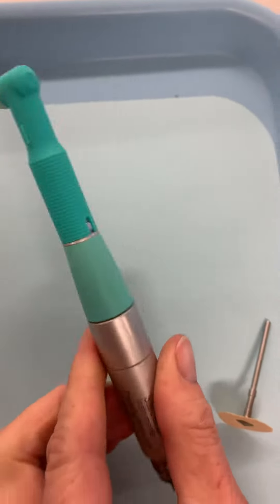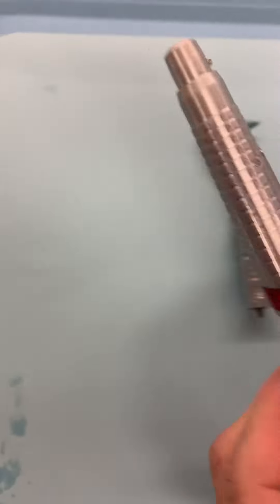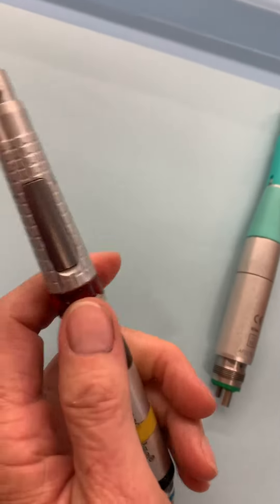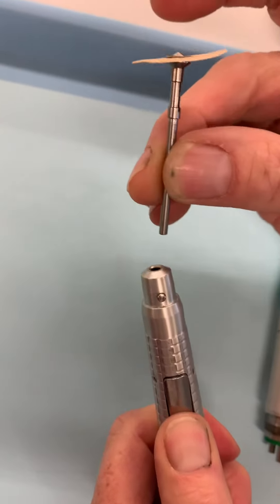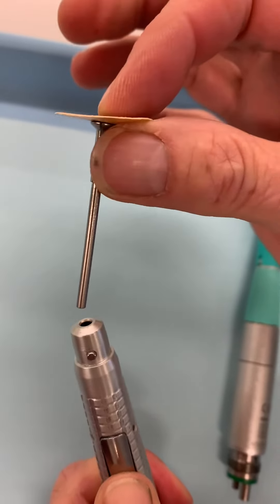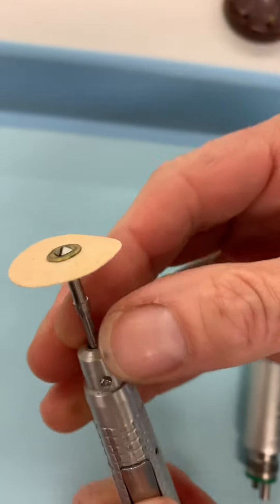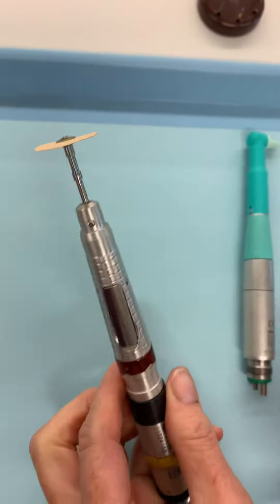Let's go back to the nose cone and put a mandrel in there. On this nose cone there's a little release — you're going to push the release, then take your mandrel, which is straight. If you look at the shank, it's a nice straight shank that's going to go into our nose cone. Then check it to make sure it's in.